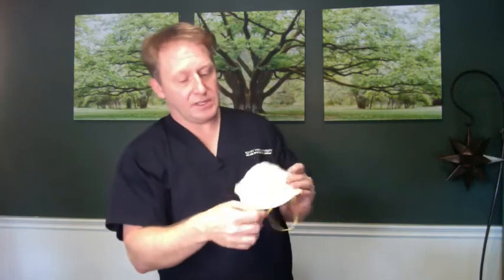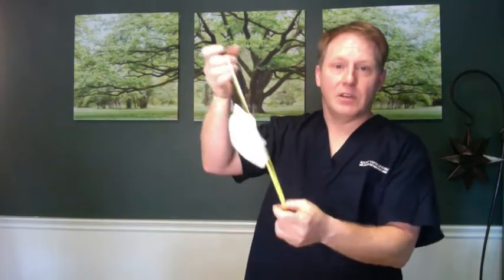The type we see most commonly in hospitals is the N95 with rubber band loops, which I think fits a little bit better. Put the top loop on first, then grab the bottom loop and bring it around and snug it down firmly. Check for any break at the nose — adjust the metal bar until you feel nothing, and it is really snug. That's why I'm more of a fan of these; I think you can get a better fit.